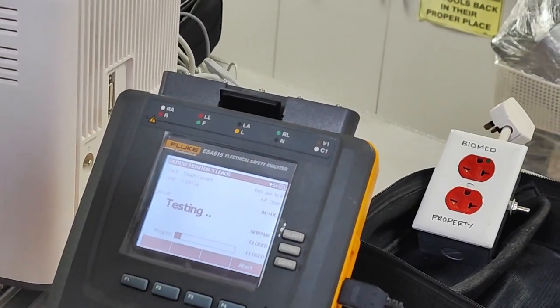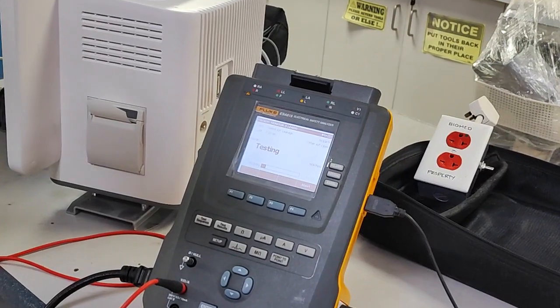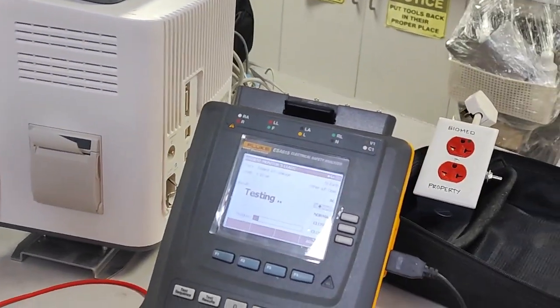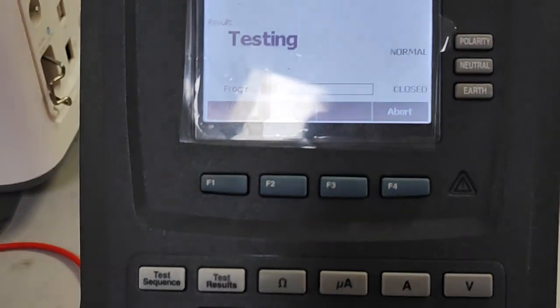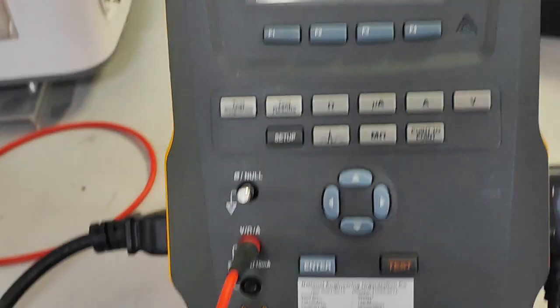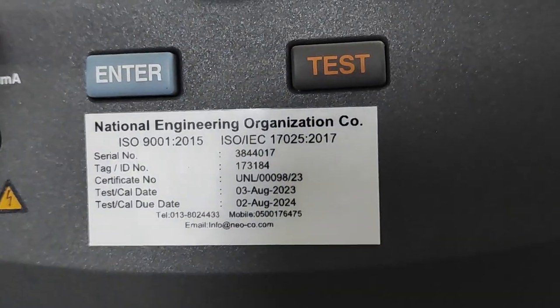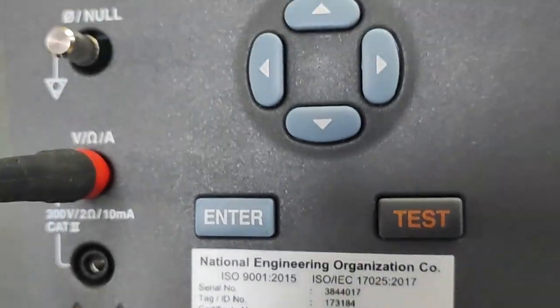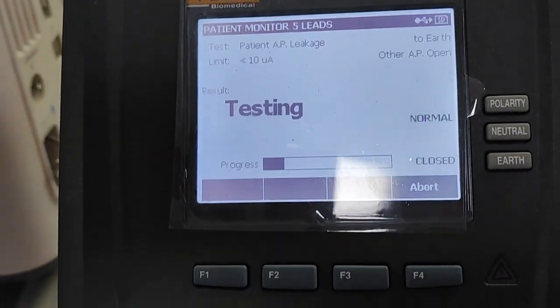After you touch the test point, leave it for about 10 to 11 minutes — it will finish. This is the rapid test. If you use normal test it will take more than 20 minutes. We are just in testing now. This machine is calibrated until August 2024 — still valid, calibrated by the National Engineering Organization and the company. Still processing.